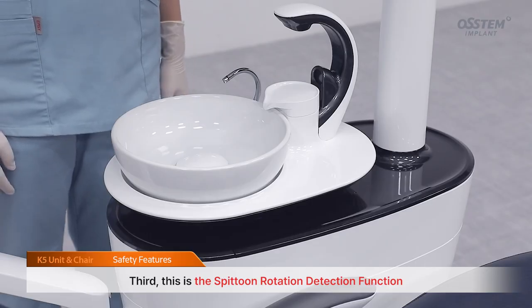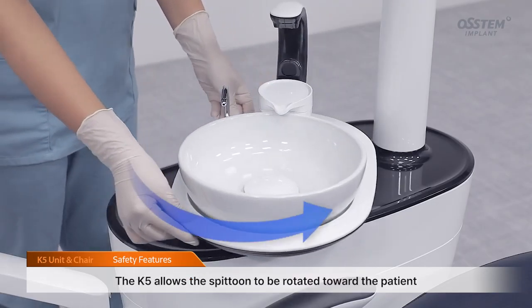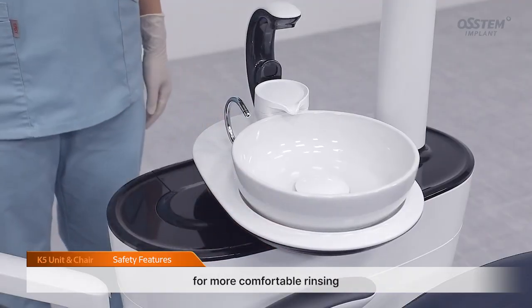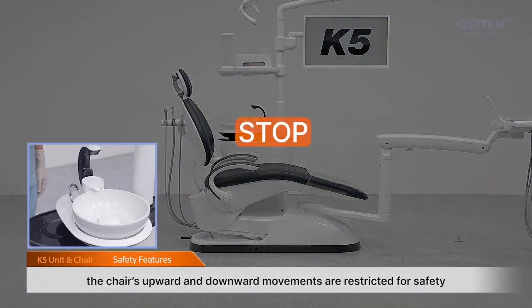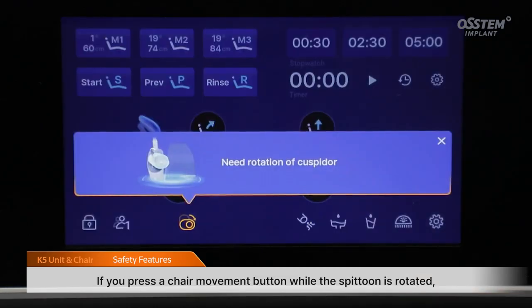Third, this is the spittoon rotation detection function. The K5 allows the spittoon to be rotated toward the patient for more comfortable rinsing. When the spittoon is rotated toward the patient, the chair's upward and downward movements are restricted for safety. If you press a chair movement button while the spittoon is rotated, a warning sound will play, and a rotated spittoon icon will appear on the LCD screen.